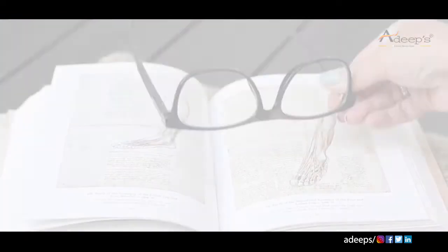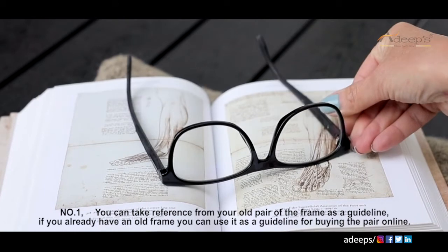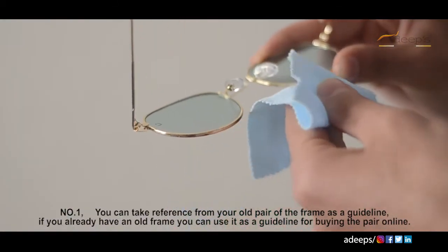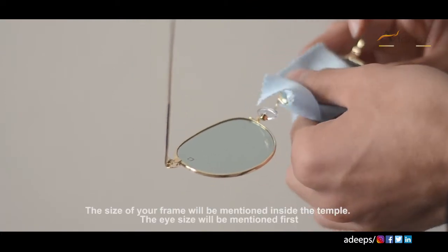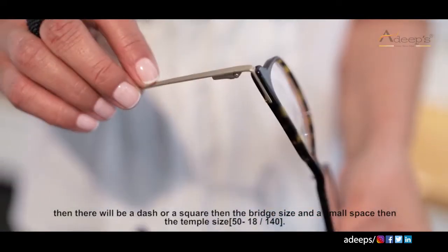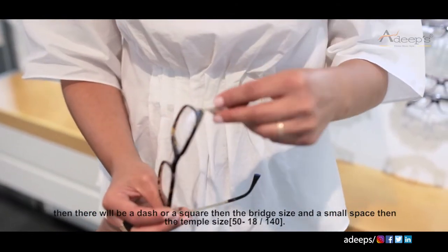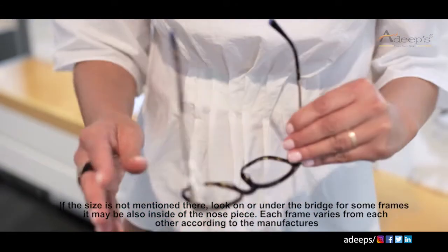How to find your current frame size: there are a few ways of doing this. Number one — using your old frame as a guideline. If you already own a pair of eyeglasses, you may use these measurements as a guideline while shopping for your new ones online. Look on the inside of each temple to find the size of the frame. The eye size is always first, then there is a dash or a square, then the bridge size, and a small space, then the temple size.